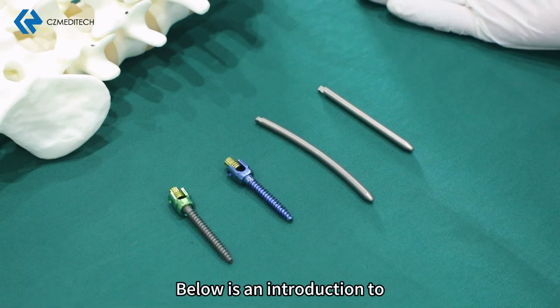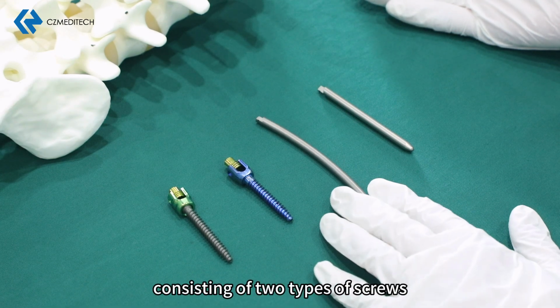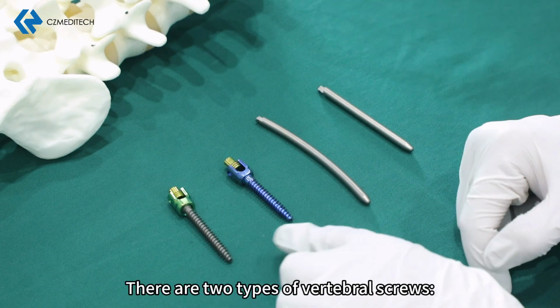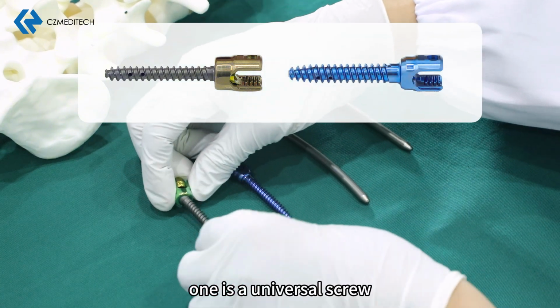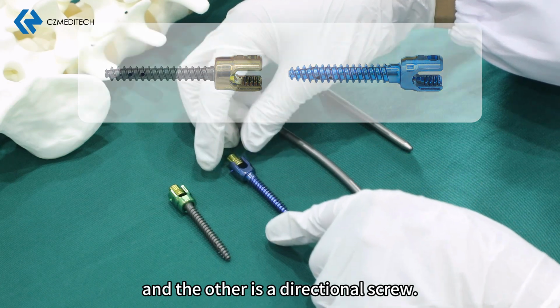Below is an introduction to the MIS implant products. There are 4 types of implants, consisting of 2 types of screws and 2 types of rods. There are 2 types of vertebral screws. One is a universal screw, and the other is a directional screw.